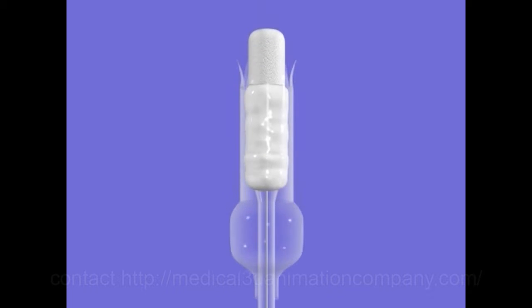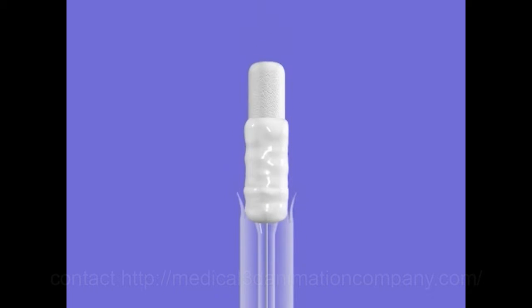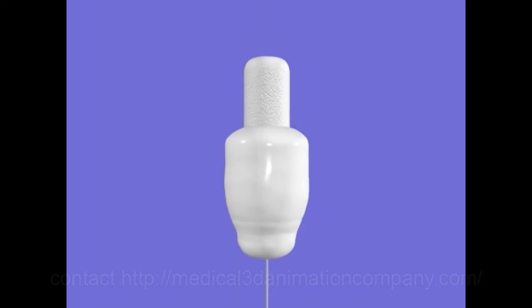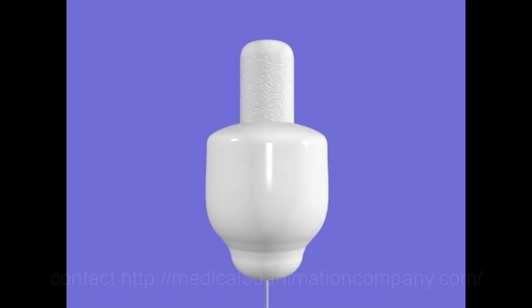The difference is a membrane made of medical grade polymer that surrounds the lower portion of the Feminova tampon. After the tampon exits the applicator, the membrane automatically expands.